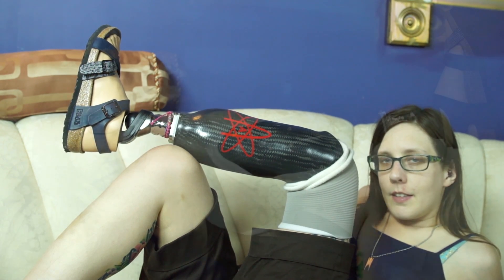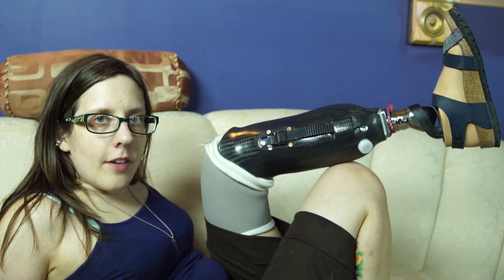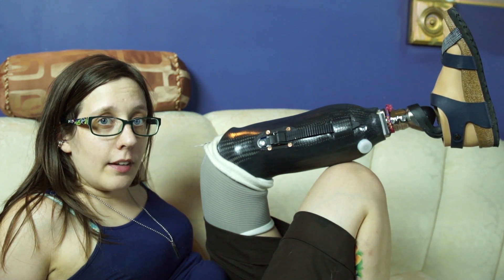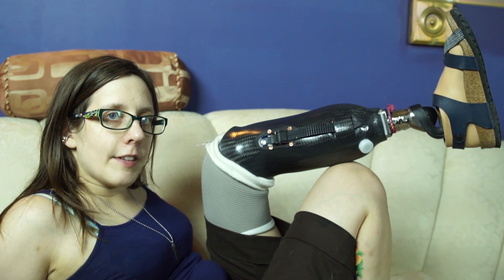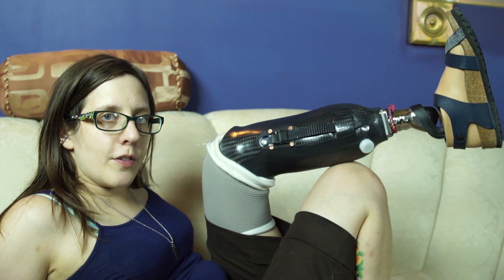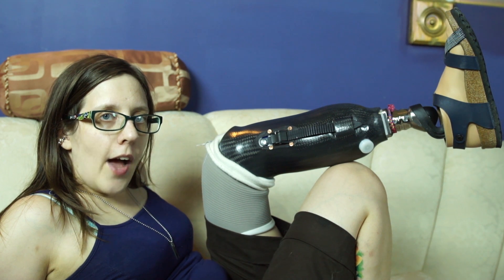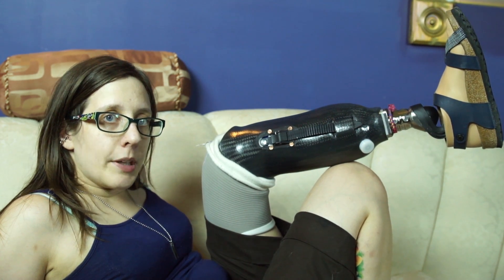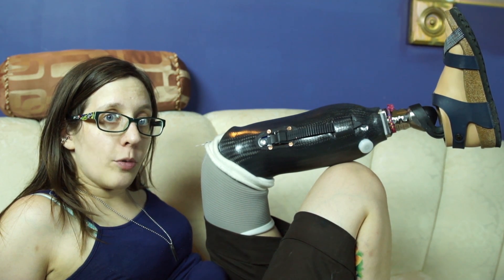This is a definitive prosthetic leg, or a prosthesis. There are a number of different ways of attaching a residual limb or a stump to your prosthetic leg. Those different methods of attachment are called suspension. Back in the day, people used to suspend their residual limb in their socket via any number of metal or leather straps, but now we have a bunch of different ways in which we can do it.